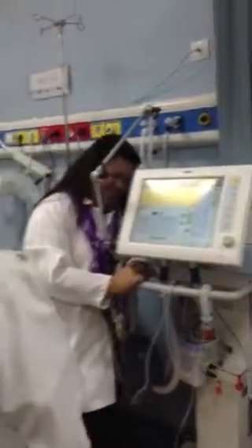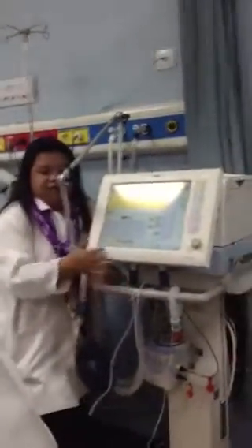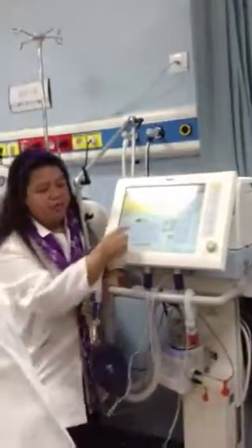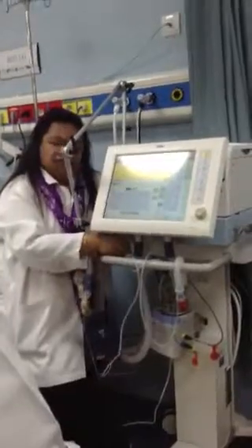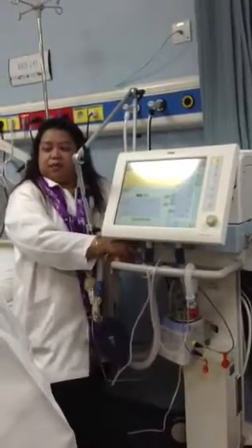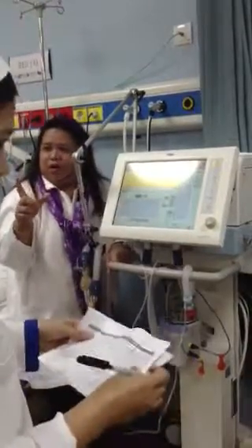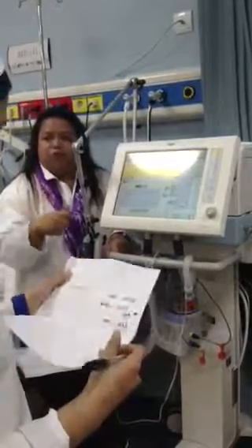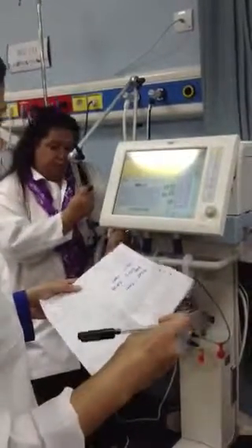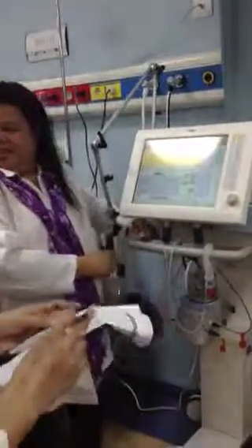Malinaw. So lahat yan, ma'am, nakapass naman. Na-check naman ito, except yung oxygen sensor, calibration of oxygen sensor. This one is showing failed because the sensor is not yet installed inside. Because your oxygen sensor has a 1 year expiry date. Then you have to change again the oxygen sensor. Press check and then standby, check, device check.